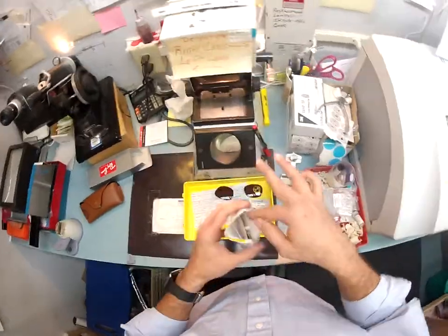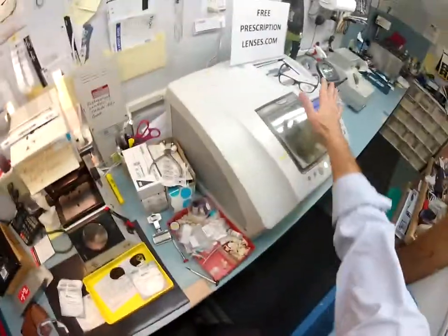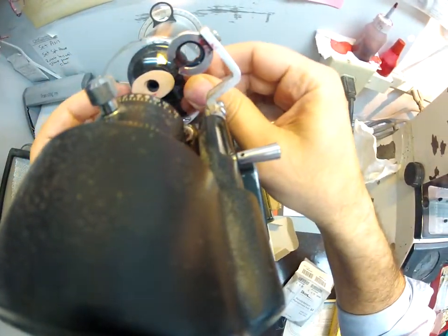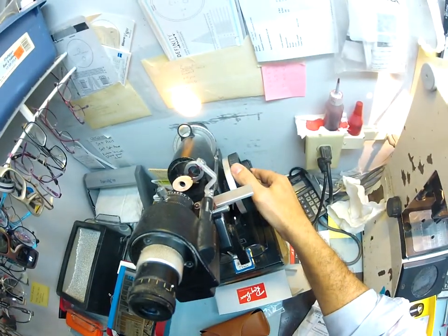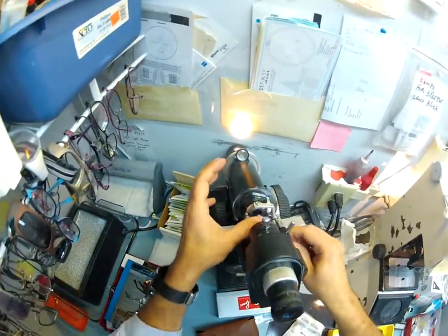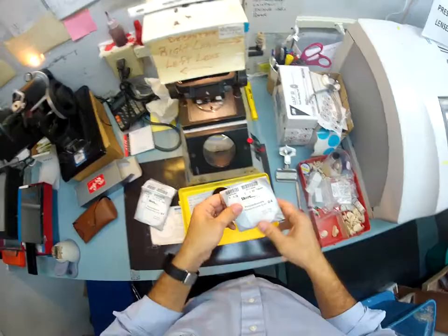Your lenses are actually this size and I need to cut them down to fit. Your right lens is minus 5, minus 0.75 at 180. I spin the axis wheel on my Marco 101 lensometer, spin the power wheel to minus five — axis at 180. Spin until your sphere power comes in clearly, check your astigmatism — the cross curve, your secondary curve — and now I'm gonna put some red dots on there, darken them so you can see them. That's the right lens.